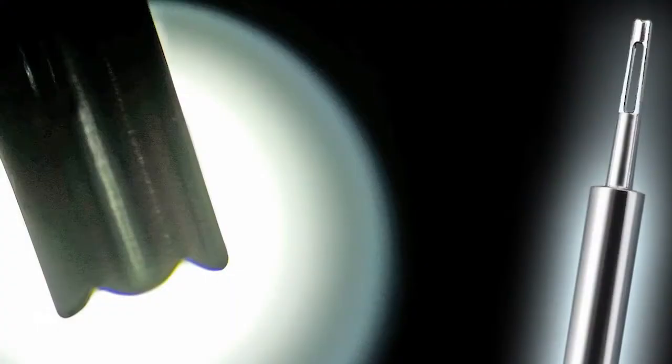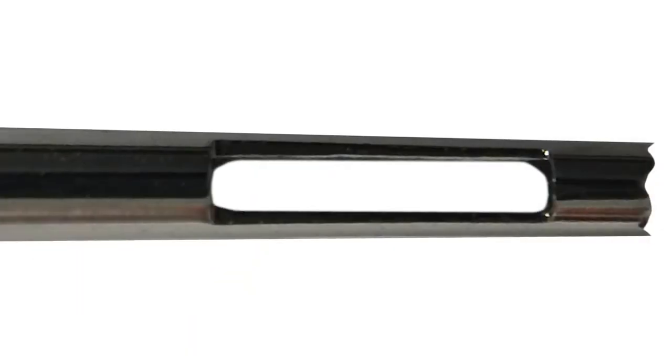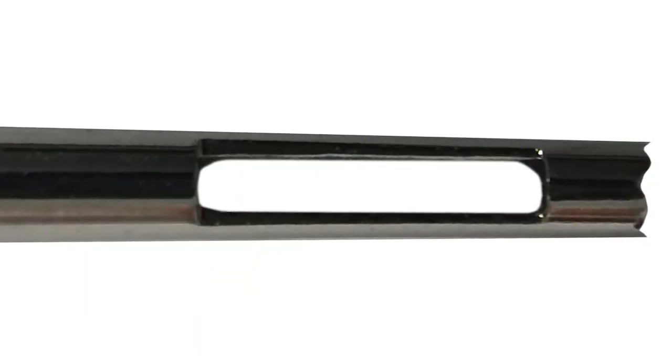Dr. Cole here, and today I want to introduce our new window punch. I began developing the window punch several years ago for personal use.